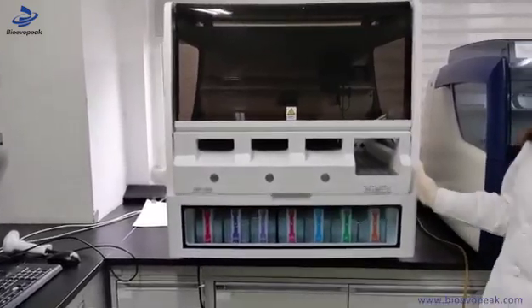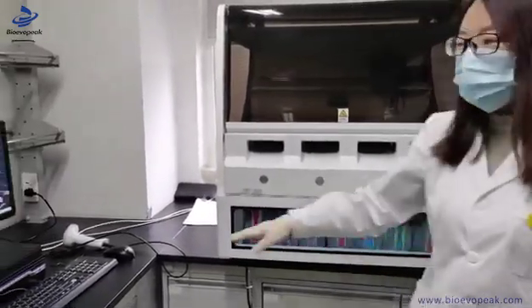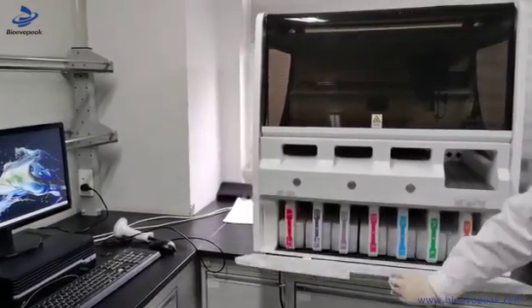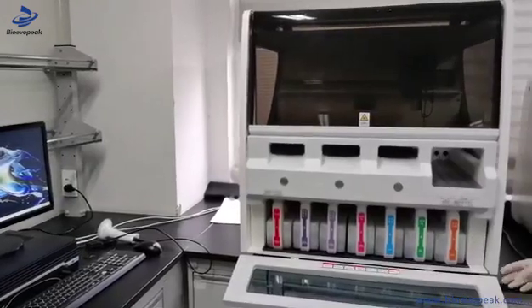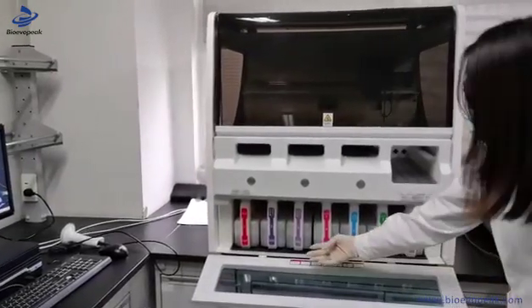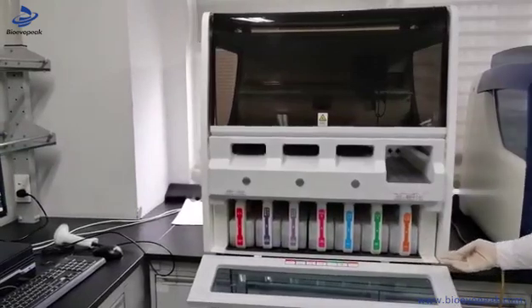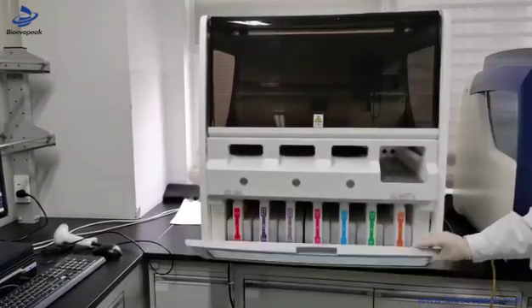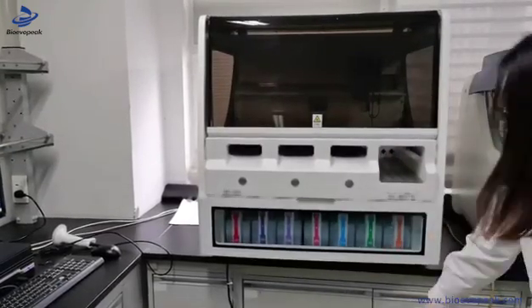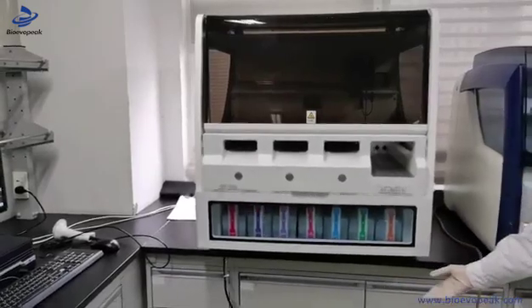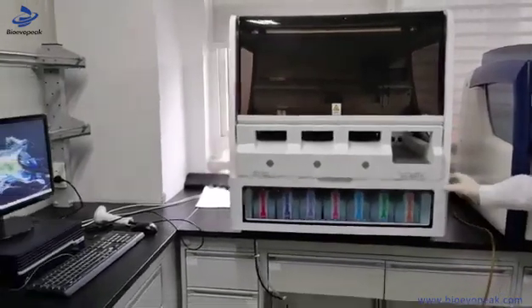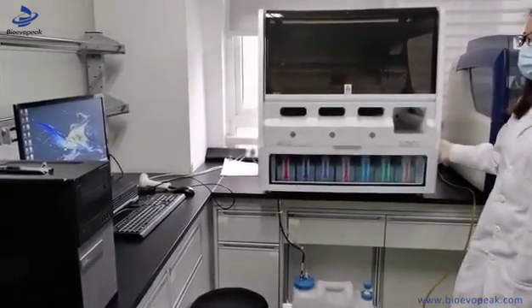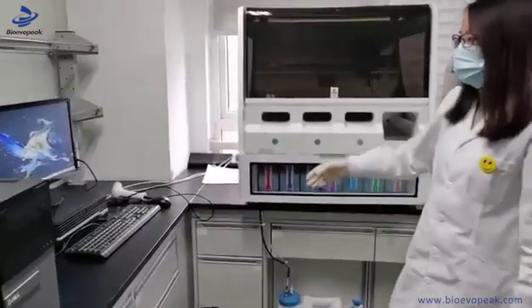If our machine and computer are ready, we should start with the machine to ensure it is ready for operation. At the same time, the machine is prepared.